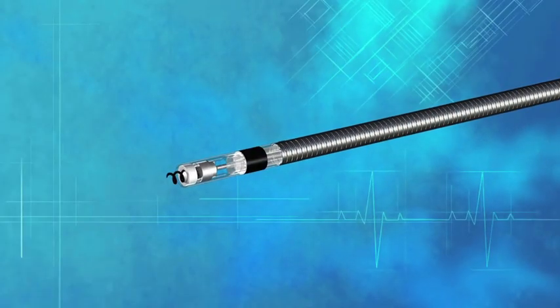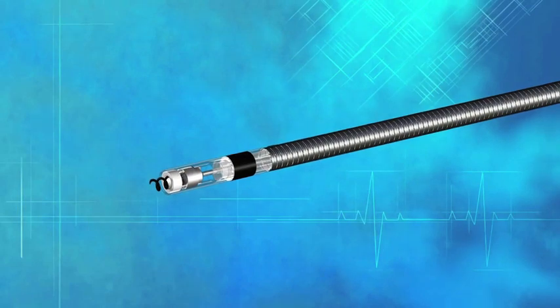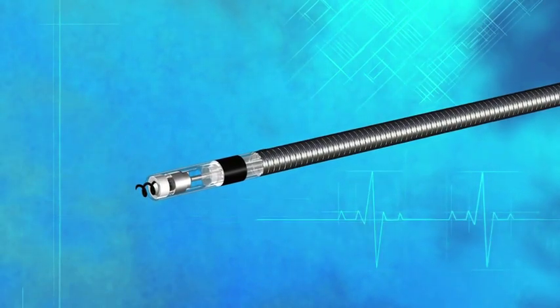With Quattro, we have true bipolar design. This means that we have a tip and a ring electrode that are dedicated for sensing and pacing. This is also a programmable feature where we can, in the instance of an issue with sensing, program to integrated bipolar.